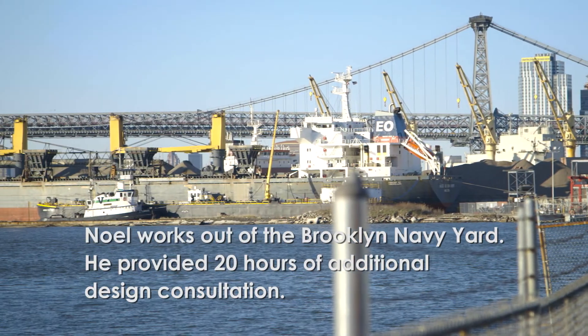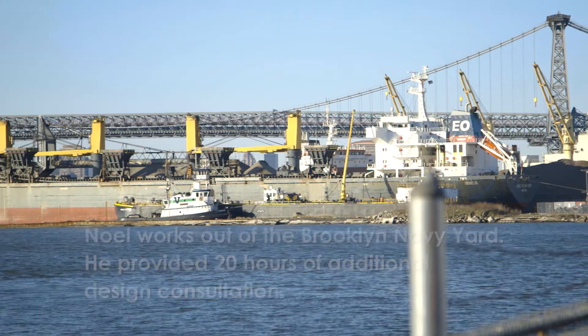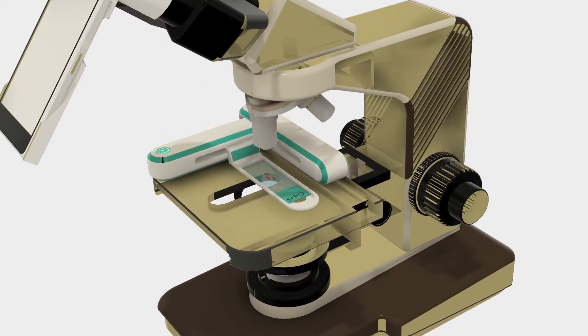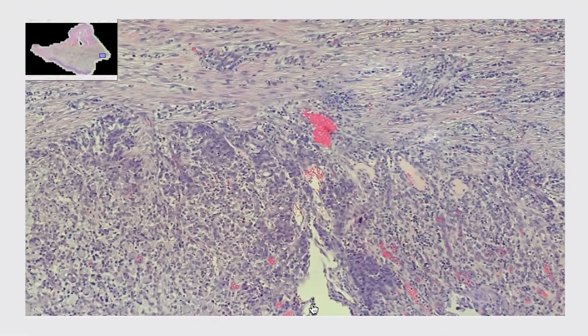We first met Alexa Path outside of the competition. I went to visit them at their studio and they showed me some of the hardware pieces they were working with. The challenge we faced was they were trying to make a slide move very slowly and in a very controlled way so that they could take micro photos at 40 times magnification.